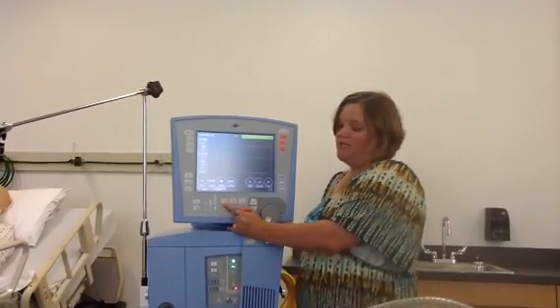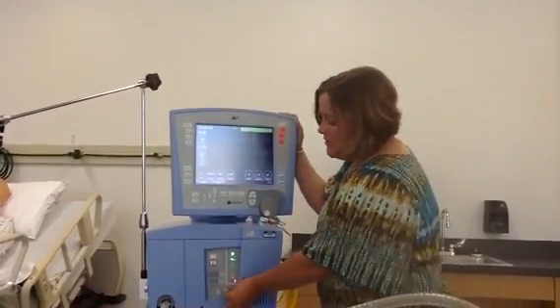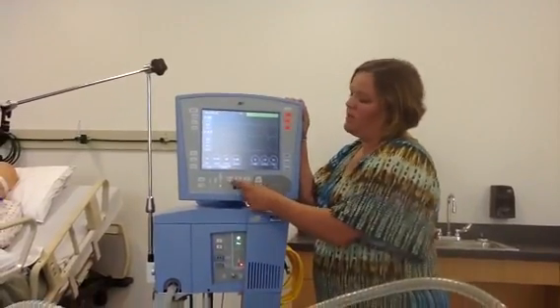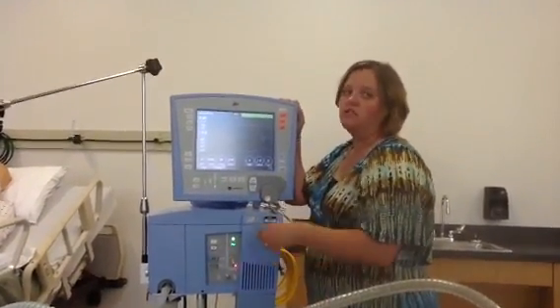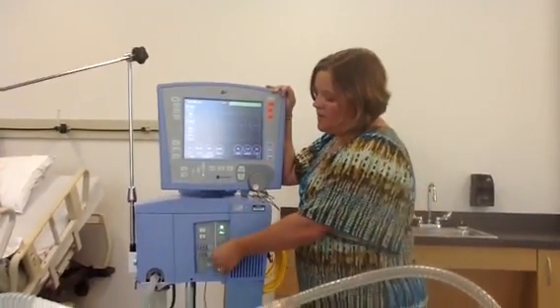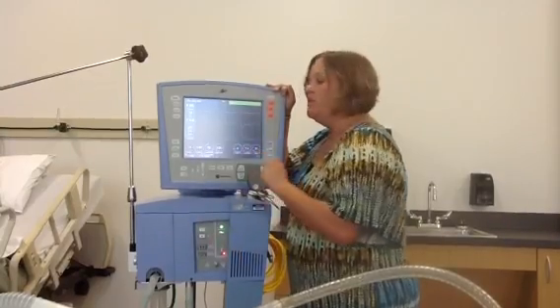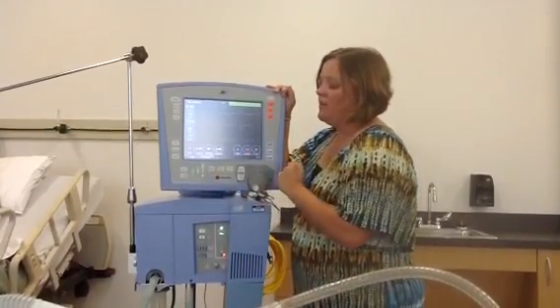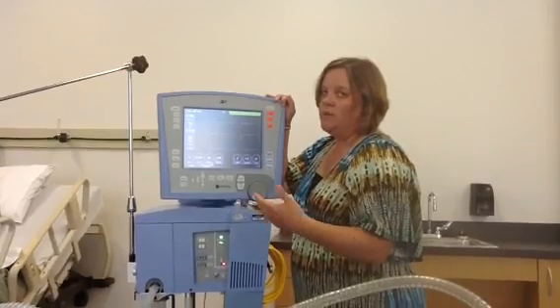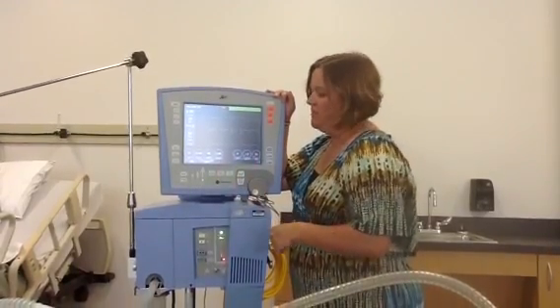This button here controls the nebulizer. This ventilator has an internal nebulizer inside the machine, and if you push that button, the nebulizer turns on. You'd put your medicine in the cup and have the oxygen flow meter hooked up to the nipple, then push that button. It runs for 20 minutes. If you need to nebulize for more time, you'd need to hit the button again.